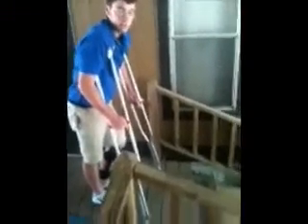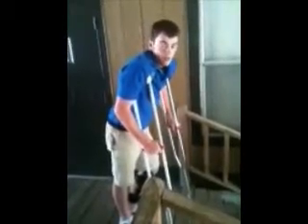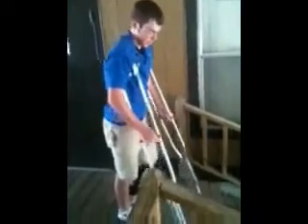Put it up. Because if you don't, this is what happens — and it doesn't work. That's how you walk on the stairs. Now going down the stairs on crutches is the opposite. When going up, you go strong foot first, then your crutches. Going down, it's the opposite — you go crutches first, then step down.